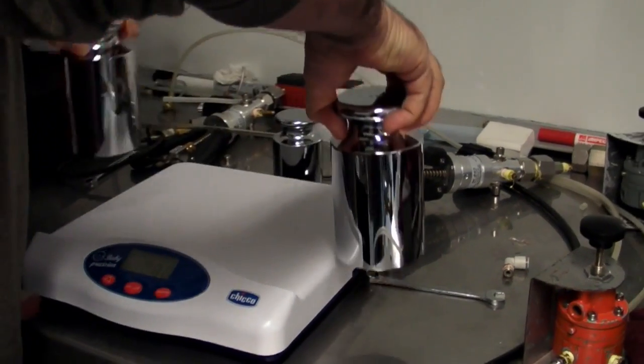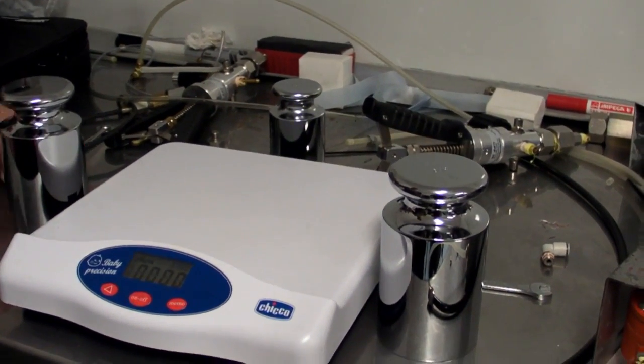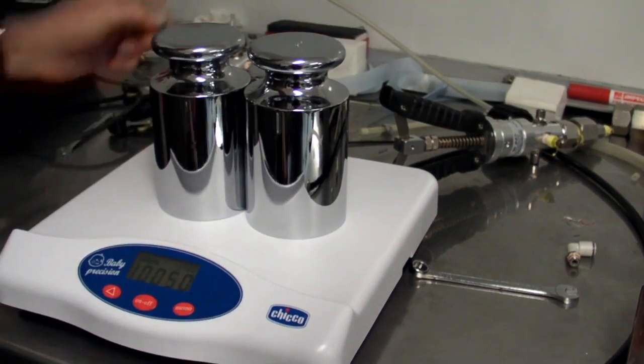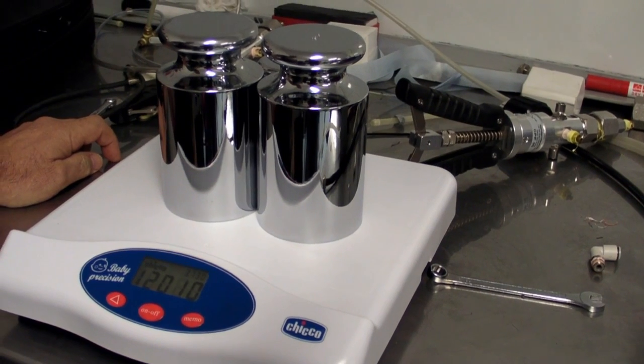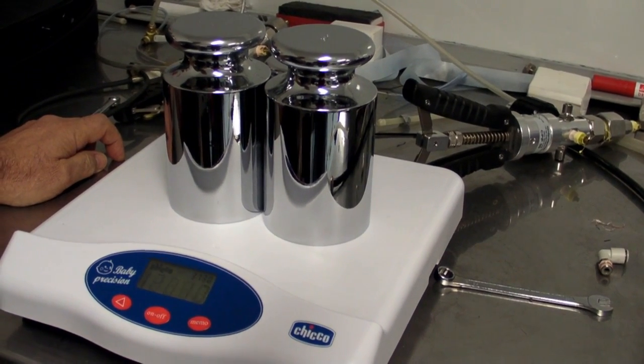And lastly, we'll take it to twelve. We don't do thirteens in here — unlucky number. You certainly wouldn't want to jinx the lab. We're losing our linearity at twelve kilos — right on the linearity side, but anyway. So there you go.